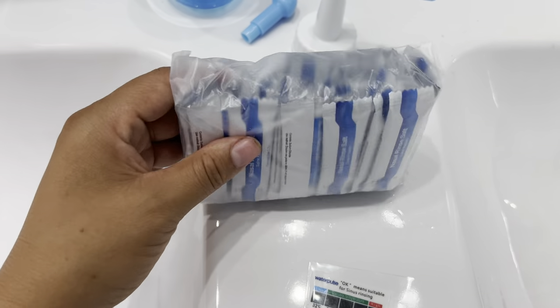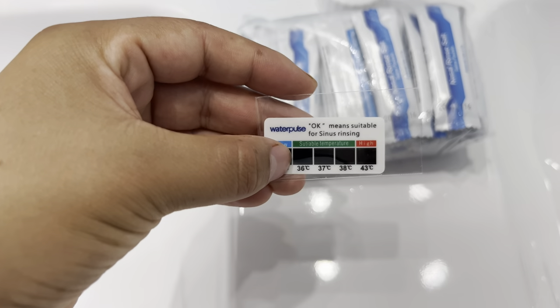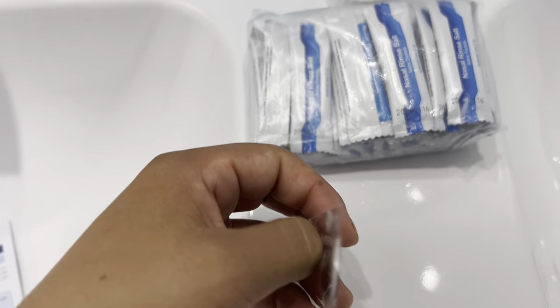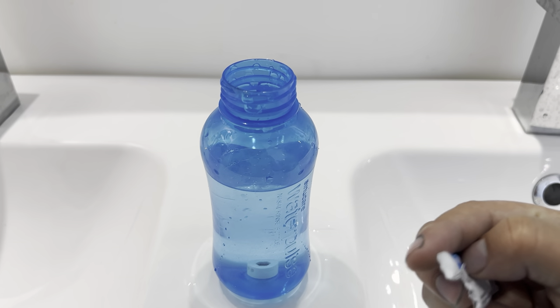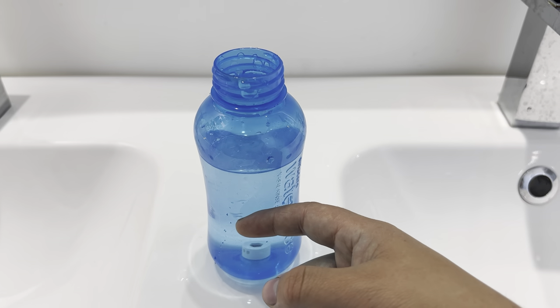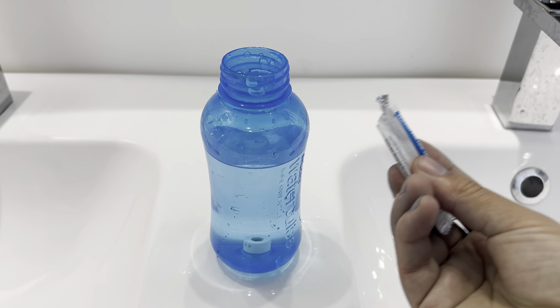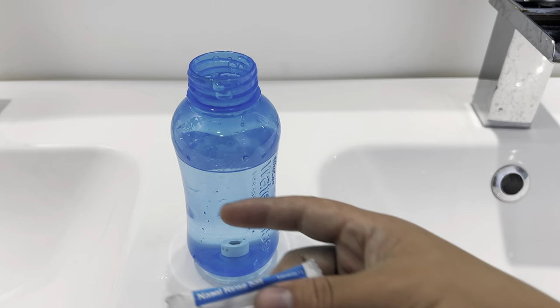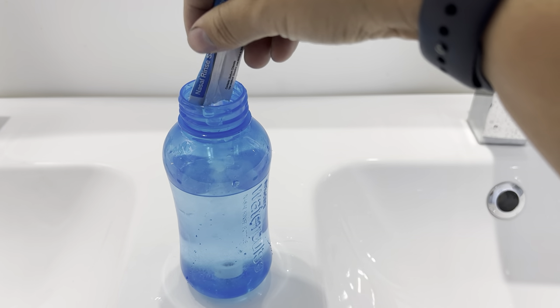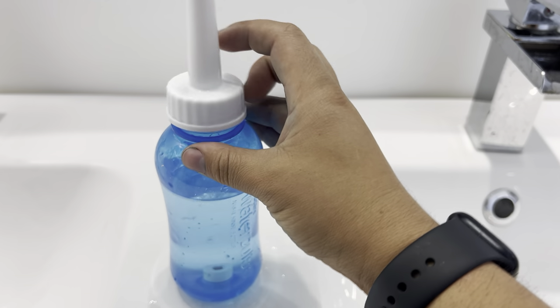There's a lot of salt powder, pretty much all sea salt. We measure the water temperature — if you don't want to feel that uncomfortable sensation of water going into your nose, add warm water to the bottle. That makes a serious difference. I tried with cold water and didn't like it. So I'm putting in warm water and then adding just the salt. That's it — close it.